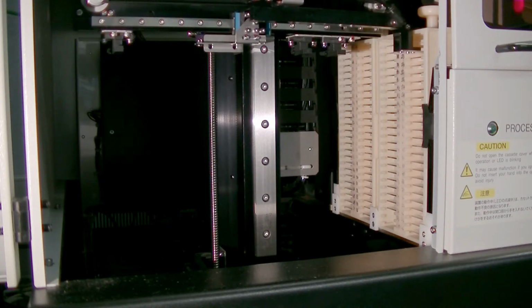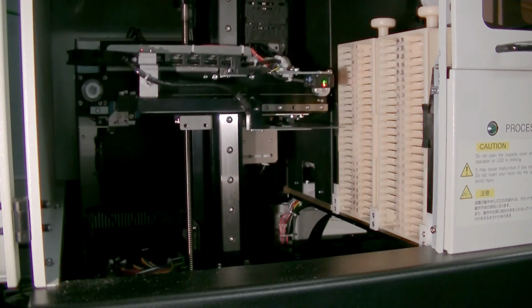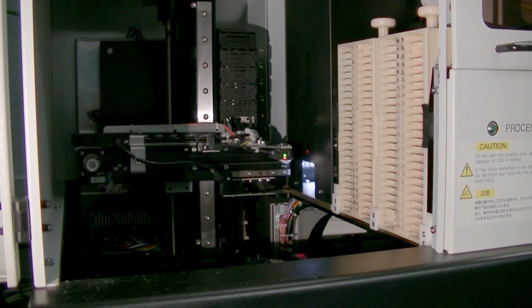Here comes the finger, it picks up the slide and it carries it to an alignment jig at the back of the microscope to make sure it's perfectly square onto the finger. It then takes a macro photograph of the entire slide.